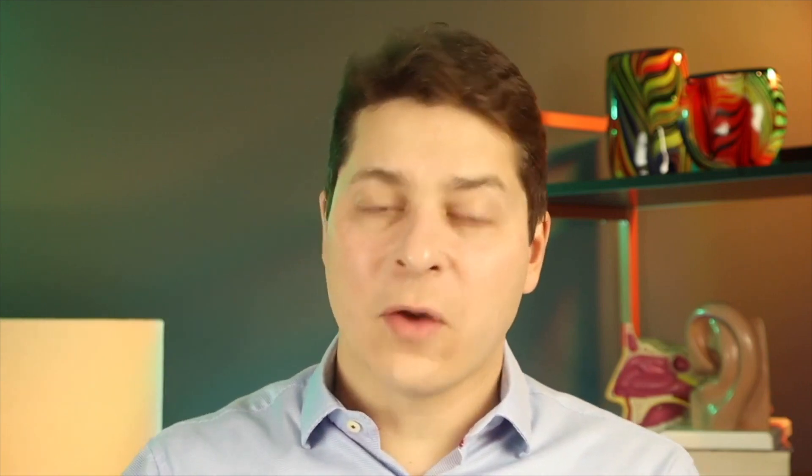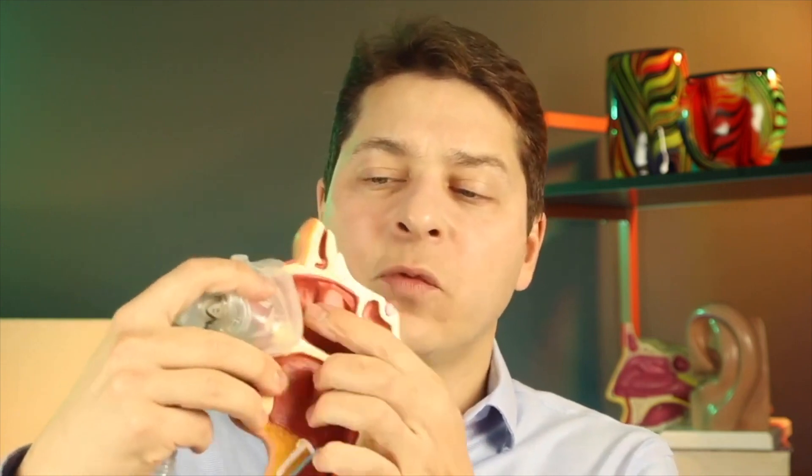Another issue is that when you breathe out, the air from the CPAP mask is under continuous pressure. The device plays continuous air all the time, so when air comes in, it has to come out. When you breathe out, the exiting air needs relief. The device can have a respiratory relief setting, and adjusting this can help. If you can't expel the air easily, it can also cause air to enter the esophagus and cause aerophagy.